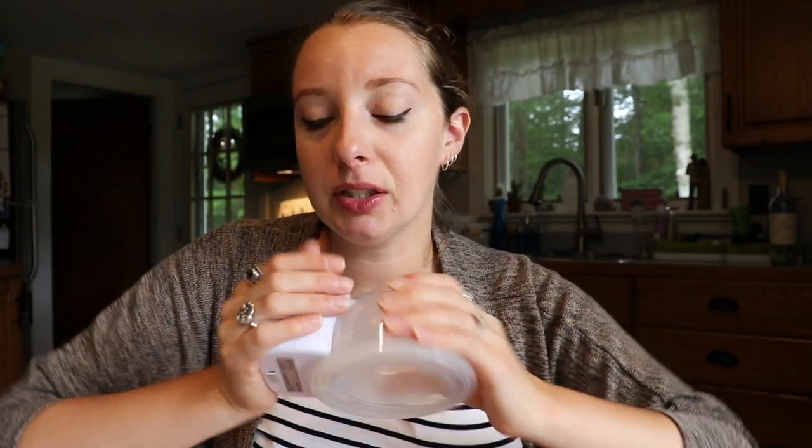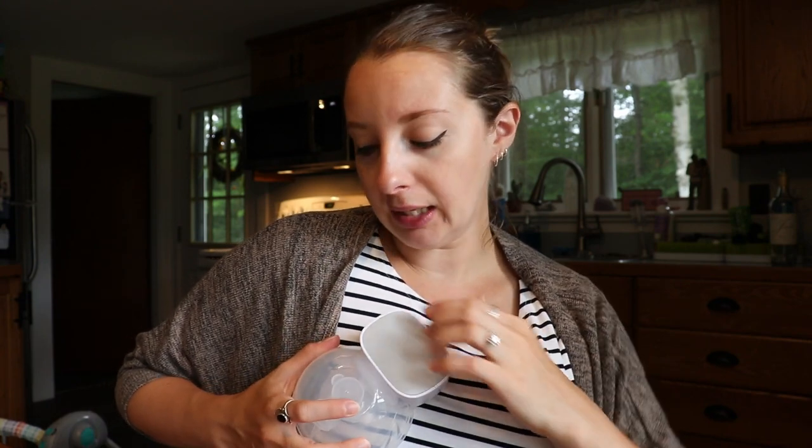It's really light — not that heavy. Sometimes this does fall off, but that's why you want to really squish it in there. I have seen a lot of people say that you want to angle this part kind of like this instead of putting it fully upright — it's a little bit easier to take out so the milk doesn't spill. I've also noticed it is a little bit hard to center your nipple in there because the opening is right at the top. If you kind of do it at an angle, you can see it a little bit better and it's easier to center your nipple in there. Once you get the hang of it and figure out where it should go, the fact that it's so hands-free, so small, and the price point is so good — I feel like that just outweighs it.